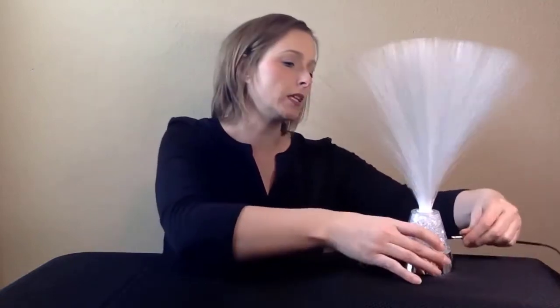To use the Fiber Optic Switch Adapted Light, simply plug in a switch. Steadily activate the switch to watch the gem-filled base change colors.